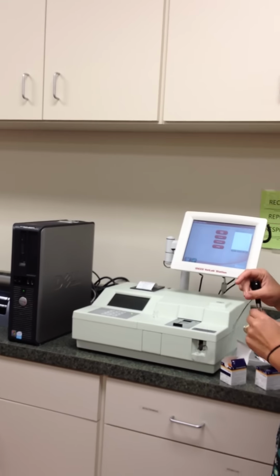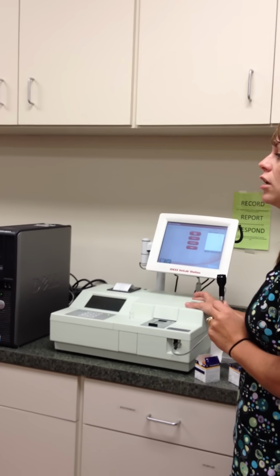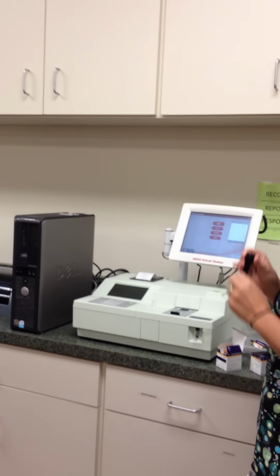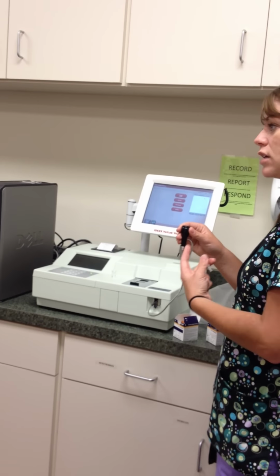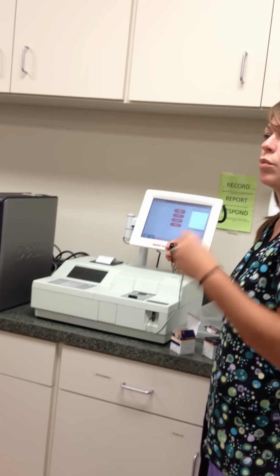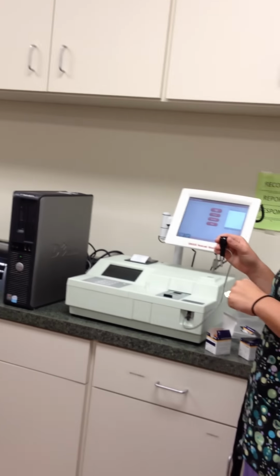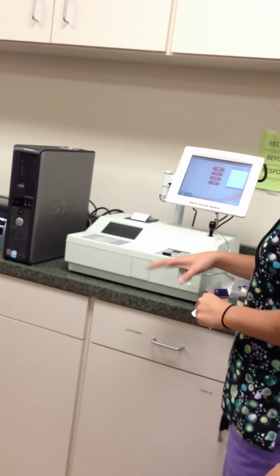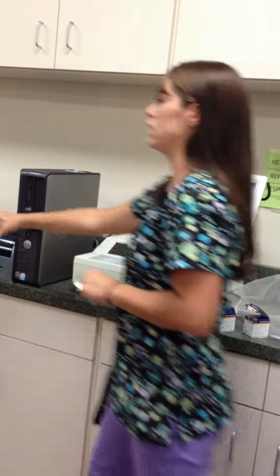Please remove your tip. We had to send this machine, this is actually a new machine, because the last machine got broke because someone in a class last quarter did not take the tip off. There was serum or plasma that got sucked up inside the system and ruined the system. So we had to get a brand new machine. Don't do it, please. Okay? Take it off, throw it away, place this back in, press enter that you did it, and then it will give you your results and print it here.